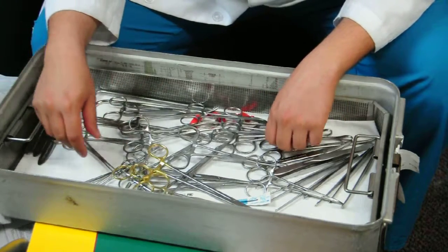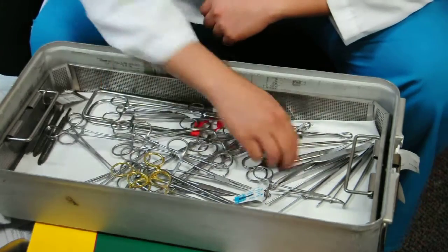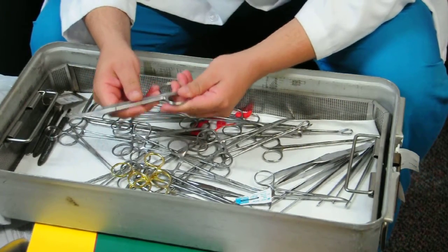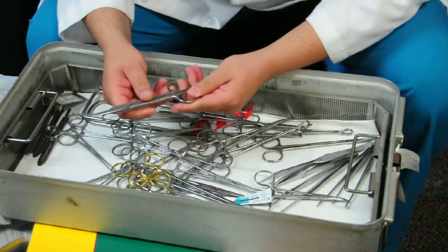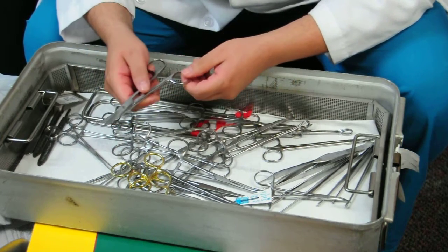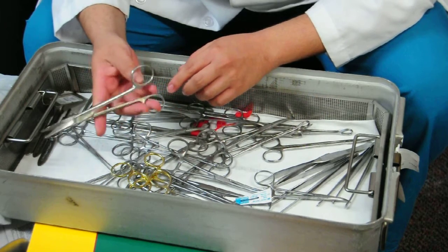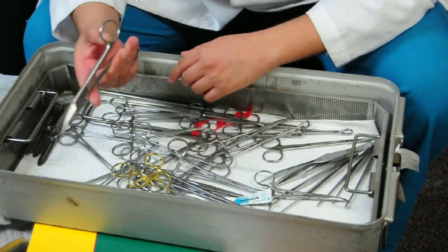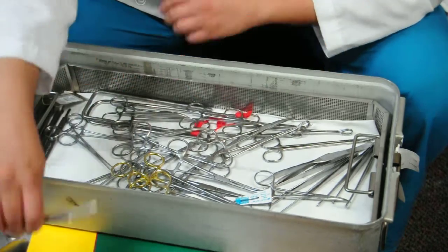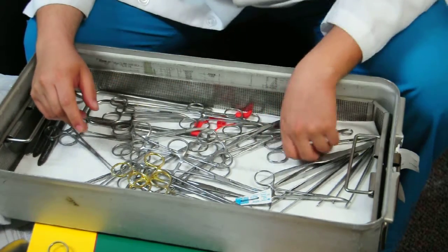There are also curved mayo scissors — here they are. They're the same size as straight mayo scissors but they're curved, and you use these to cut pedicles like omentum or uterine artery. You can also use them to cut suture, but you should really use your straight scissors for that.